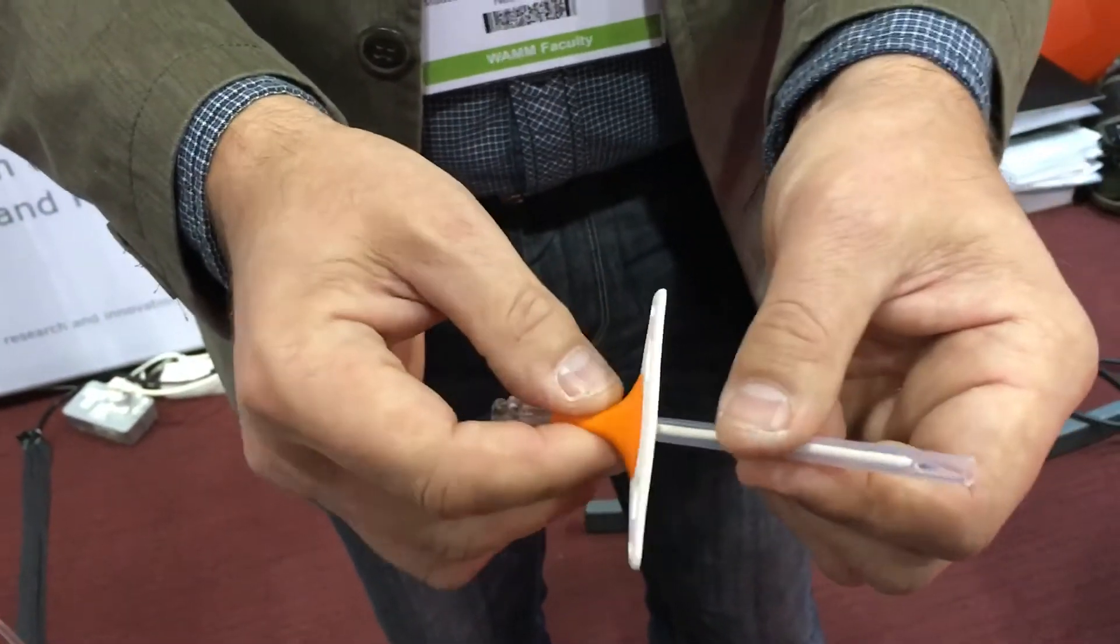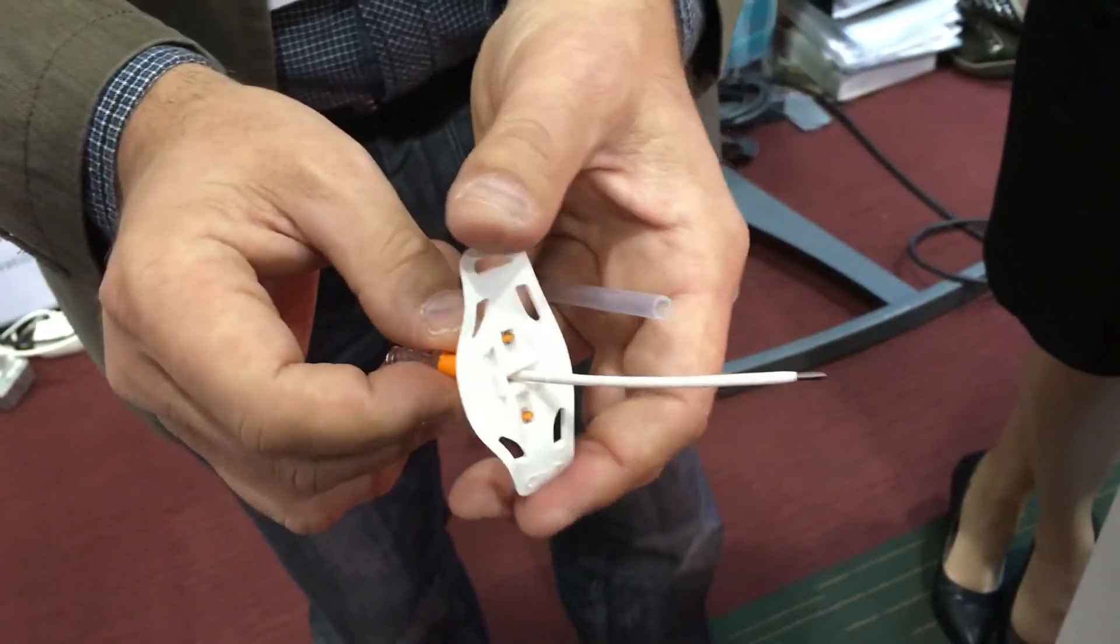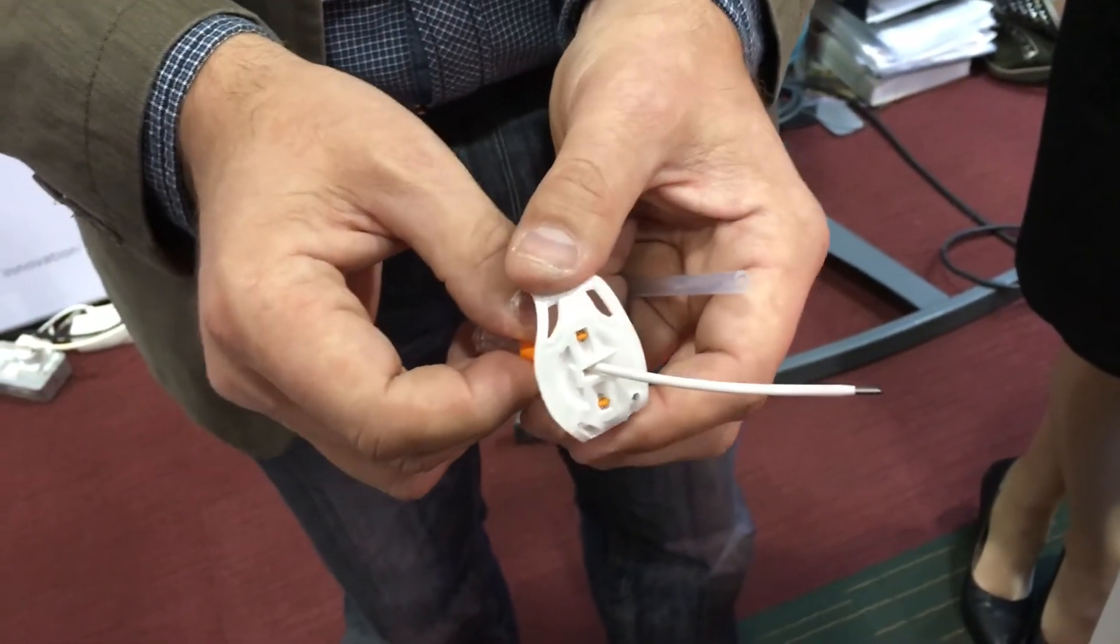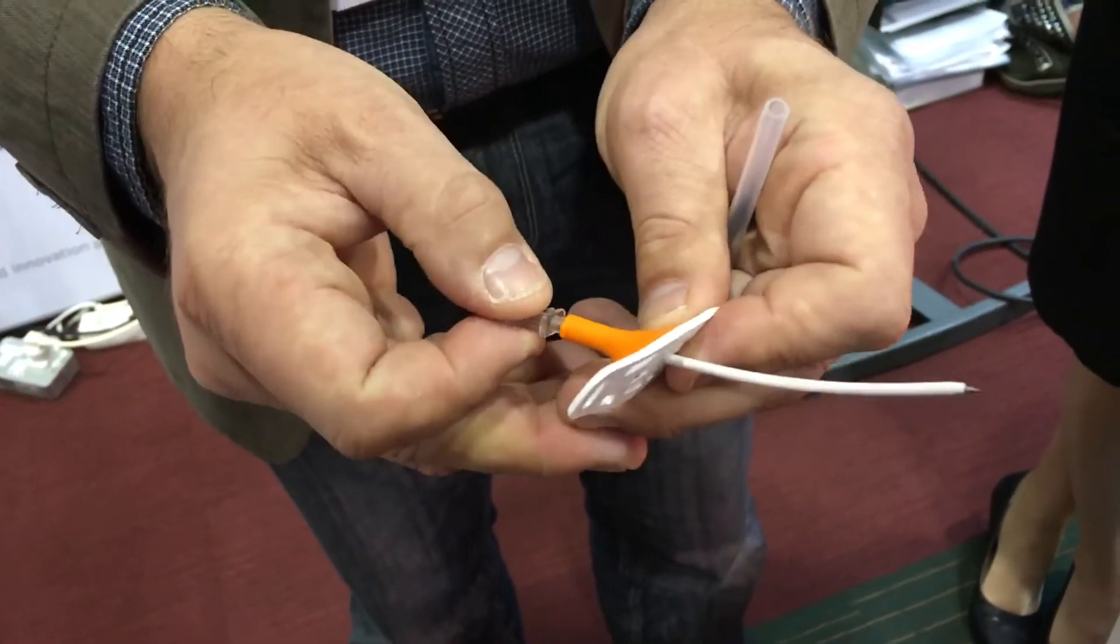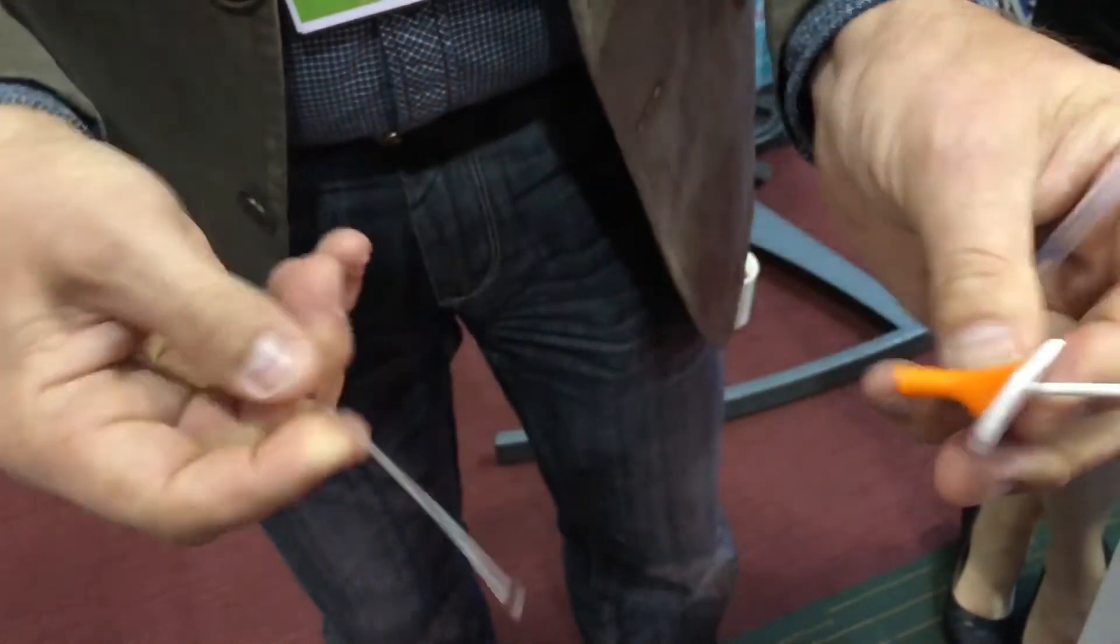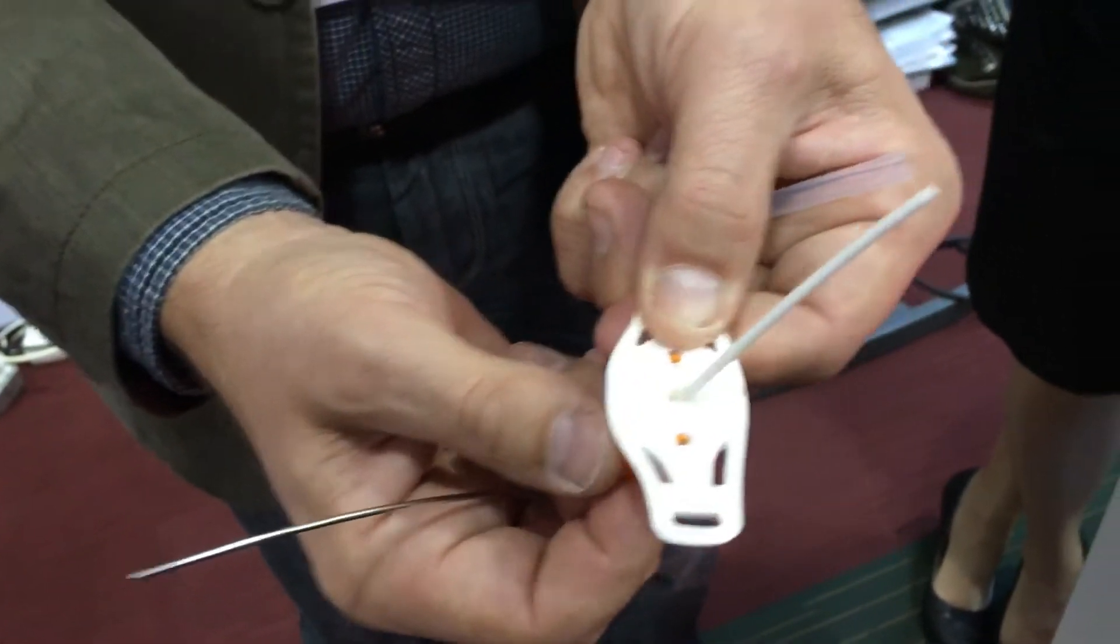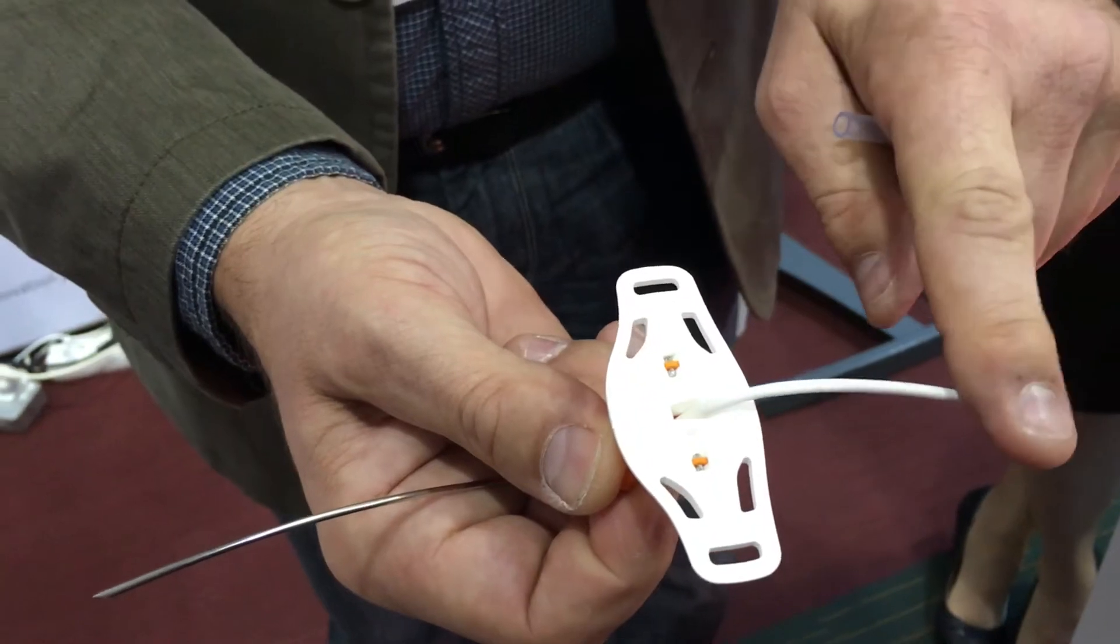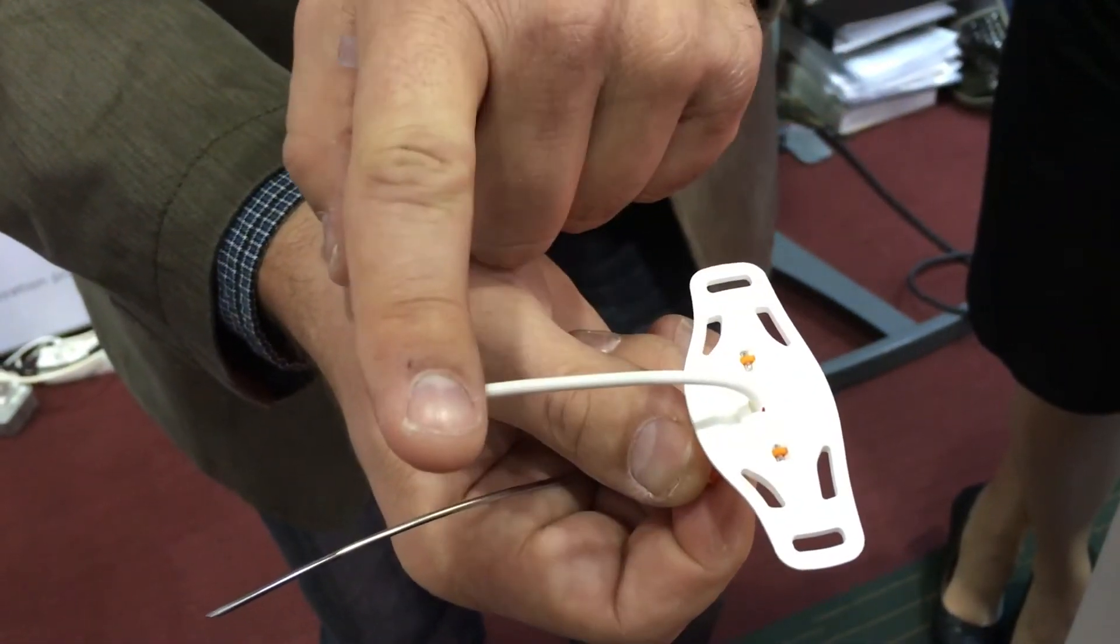This cannula is intended to be used in adults. It is especially designed a dedicated needle cricotherotomy catheter. It has a sharp stylet, and the neat thing is it has sort of a movable flange. And look at this. I can bend this catheter pretty extreme without kinking, out to the back.